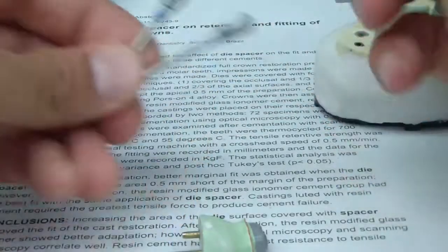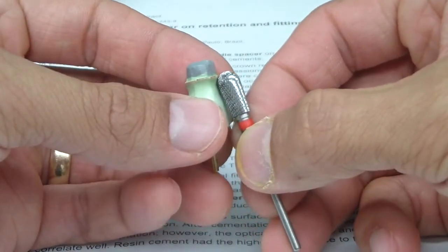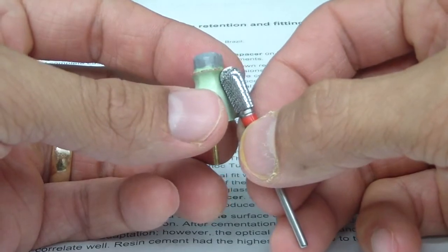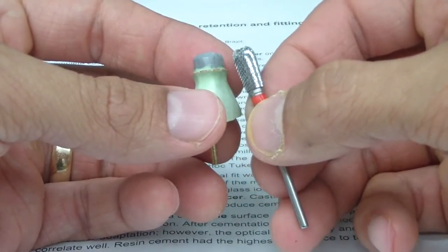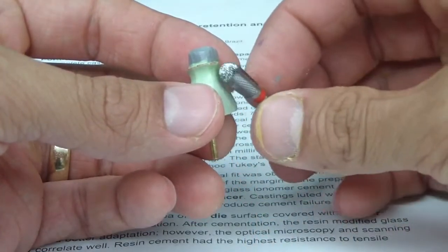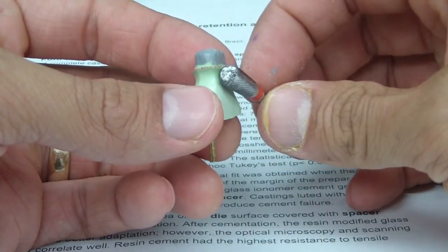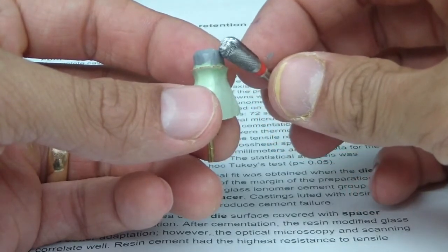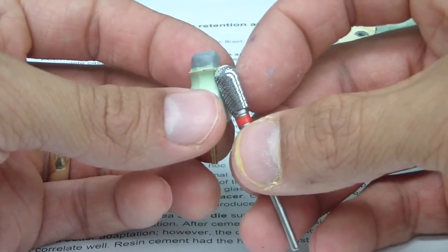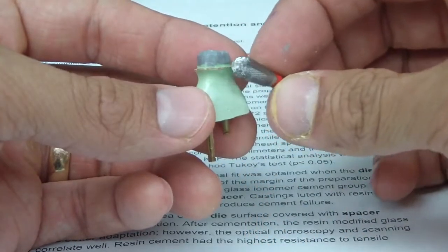There's a little variation of shape, but the idea is that you can take this bur and it's got just like a perfect match — almost the perfect emergence contour profile to get a nice contour on that wax in the crown. Additionally, when you're spinning this at low speed, it's spinning this way, so it's not about to grip. Even if you're going forward, compare it to going forward here — it's going to possibly engage, take a bite, and sort of roll over your margin. When you're doing it this way, it goes nice and smooth, engaging laterally, so less problem of engaging your margin.